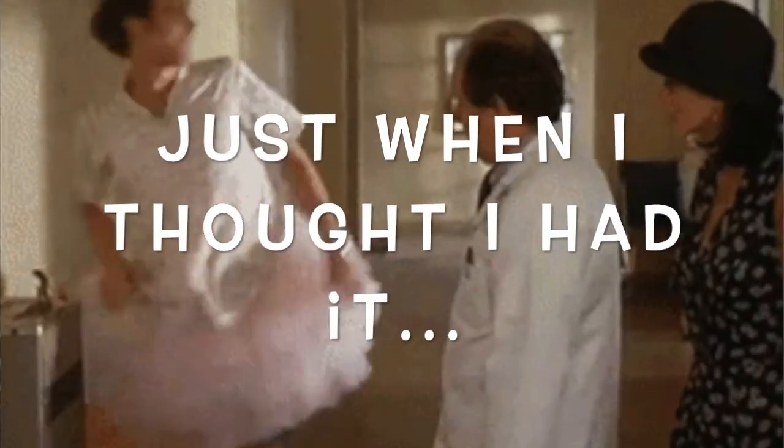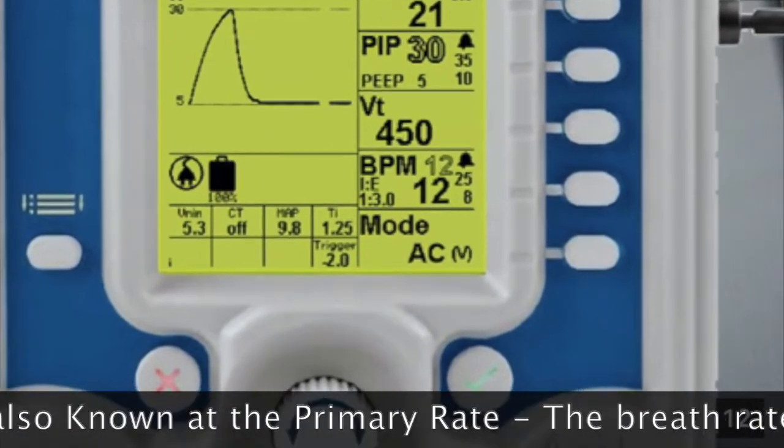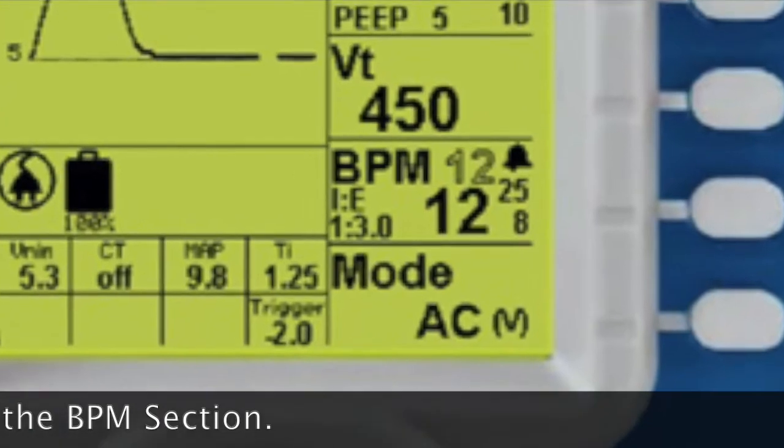Assist control volume has a shortcoming, assist control pressure has a shortcoming — well, assist control as a whole has a shortcoming. In assist control, it doesn't matter who initiates a breath. Every single time, whether you're in a volume mode or pressure mode, the same concept applies: every time the patient takes a breath, it ventilates them and assists them with a controlled volume of whatever you programmed — let's use 500cc's as our example. When you program a ventilator and set the backup rate to 12, you're assuming the patient is breathing 12 times a minute.